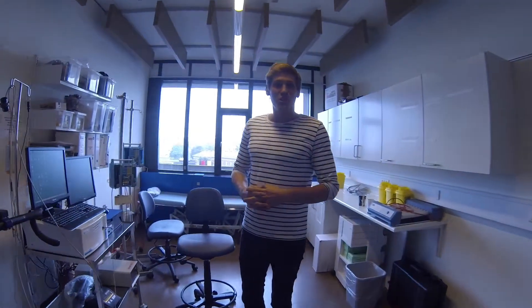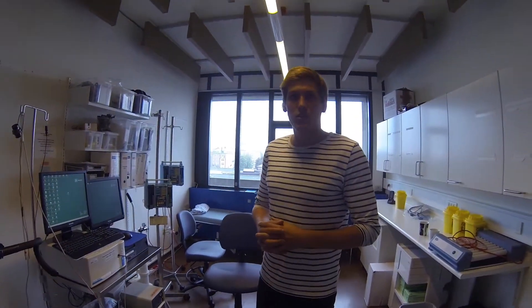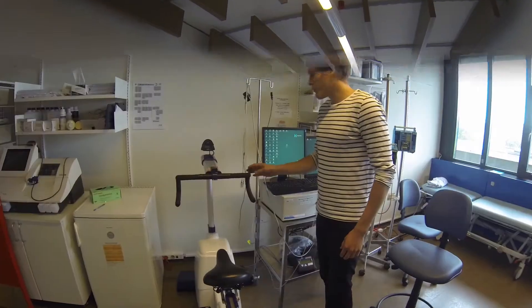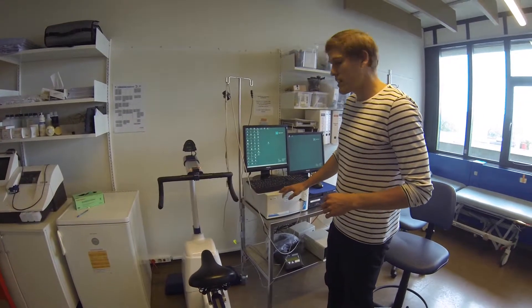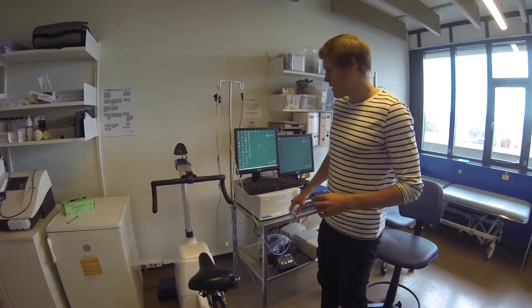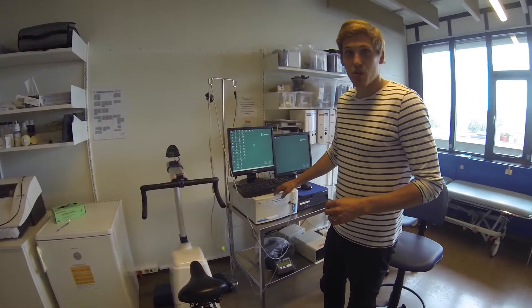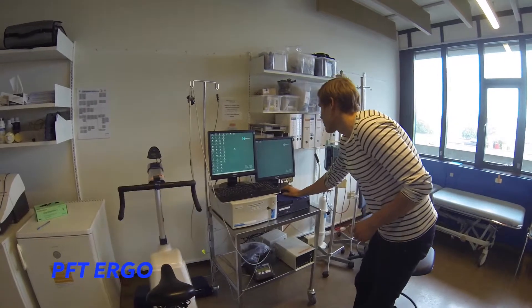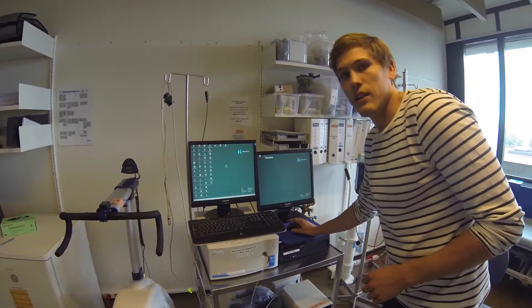Welcome. Today we are going to show you how we are going to make the max test. Right now we'll just have to do some preparations for the test. Before we begin, we need to make sure that the calibration of the gas analyzer is alright. We've pushed on this button — it has to be turned on 5 minutes before we use it. Then through this software program we are going to initiate the calibration.